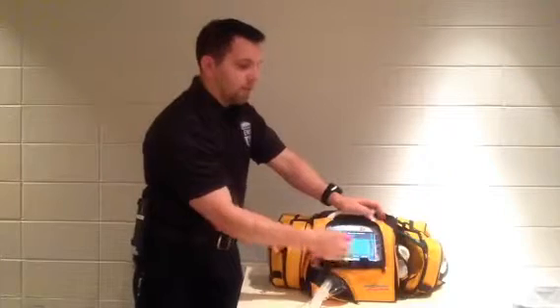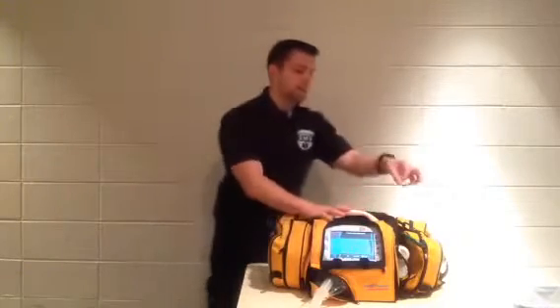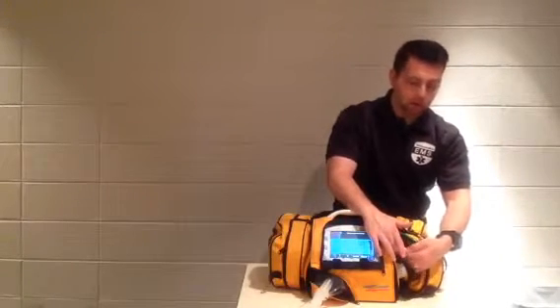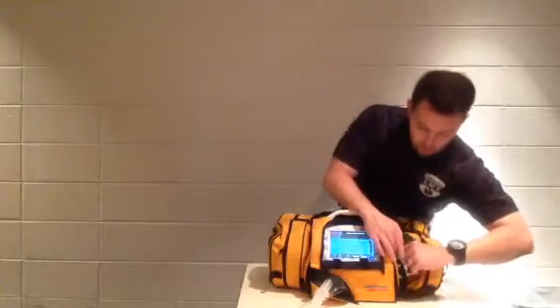Now, cylinder time. There is a calculator in here for cylinder time. We don't typically use it, but it's possible. For mixing in air, your FiO2, that's where you have this dial over here. It's a manual dial. It goes all the way down to 21%, so room air, right here at the bottom of the dial. And then you physically crank it all the way up to 100%, and it's going to bleed air into your circuit line.